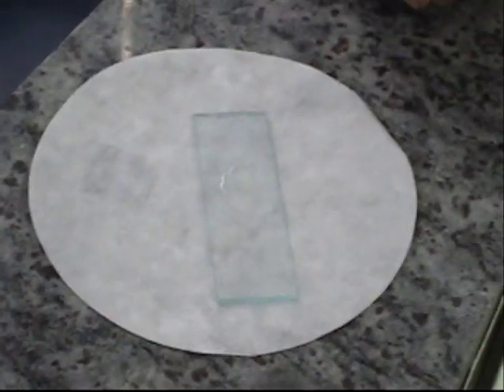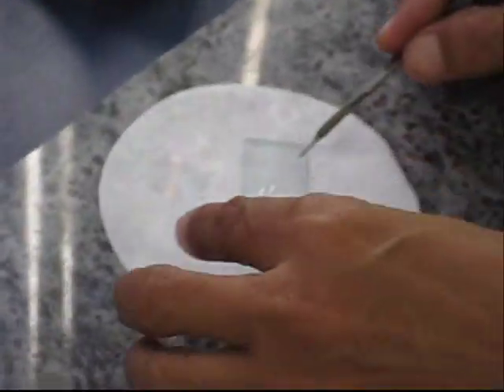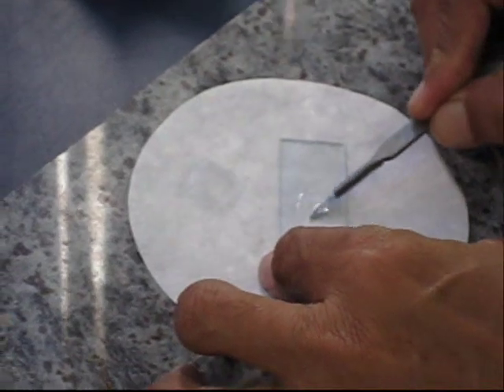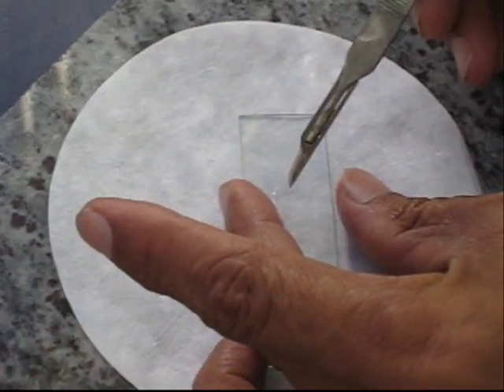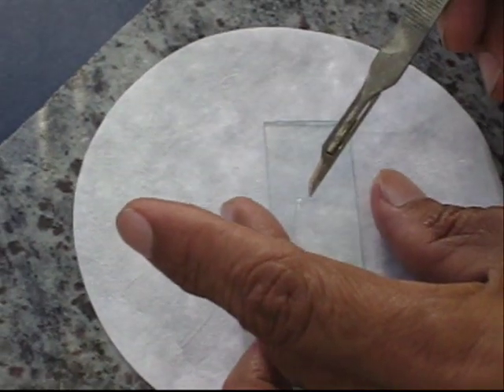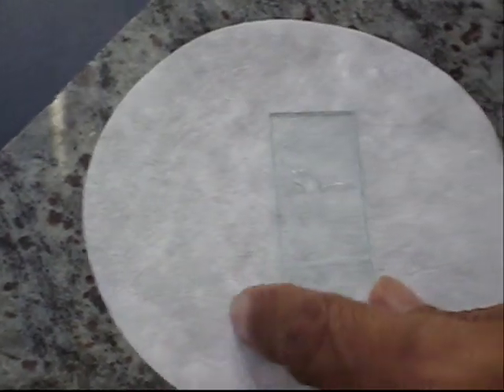In case of infected hairs, we have to wait for 30 minutes, and in case of nails, we have to wait for 24 hours, because this is the time taken to dissolve the normal skin, hair, and nails.